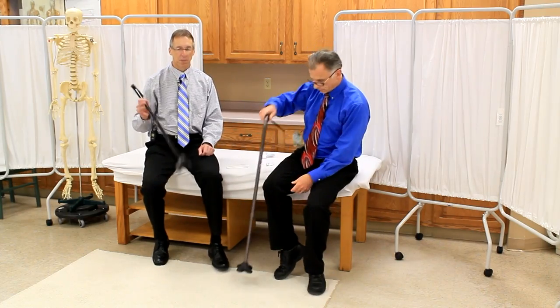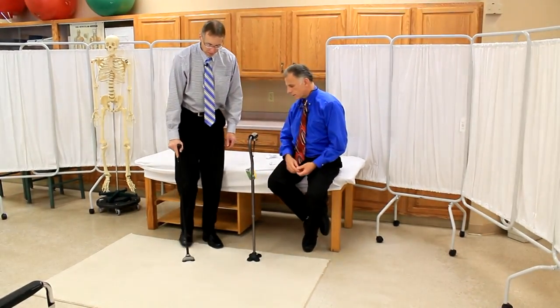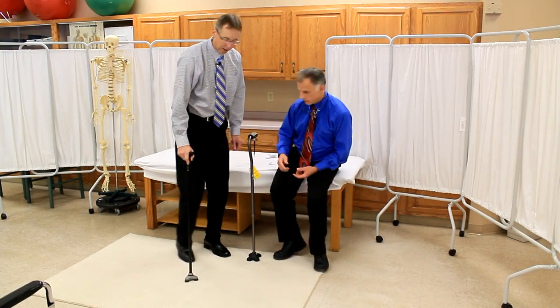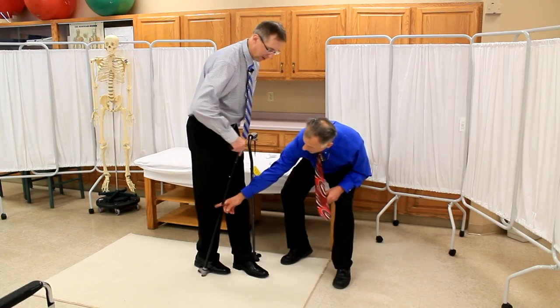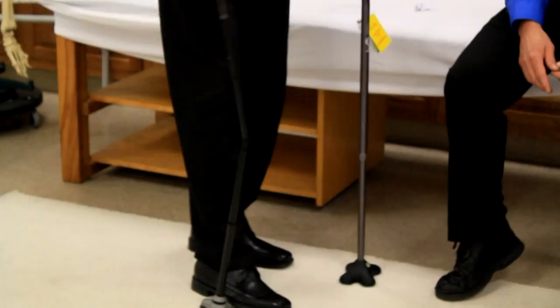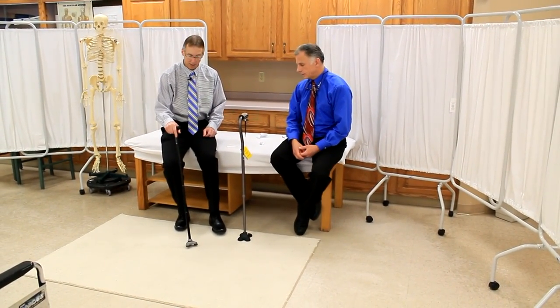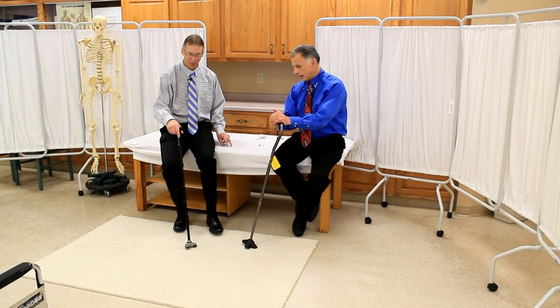Now let's talk about the complaint of this Hurrycane base. It's smaller, so you're less likely to step on it — but if you do step on it, this is what can happen: the cane can actually fall apart and collapse. You might think that's unlikely, but I saw in the reviews it happened to a couple of people and they fell down. That's a very dangerous feature, unfortunately.